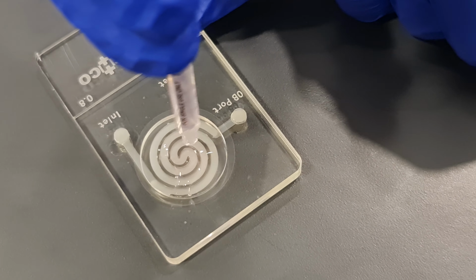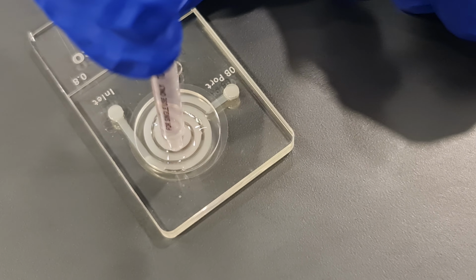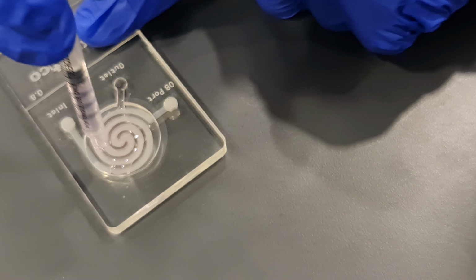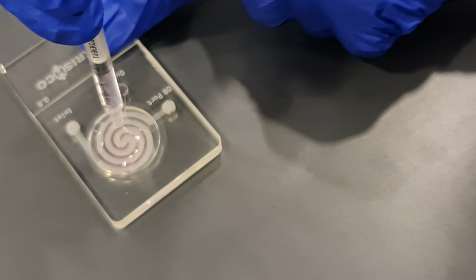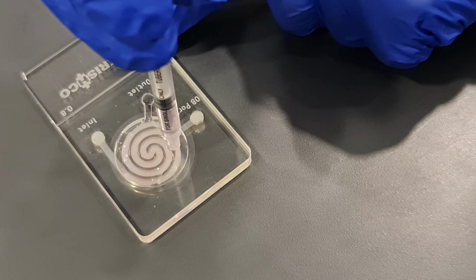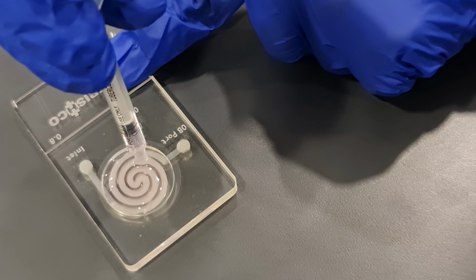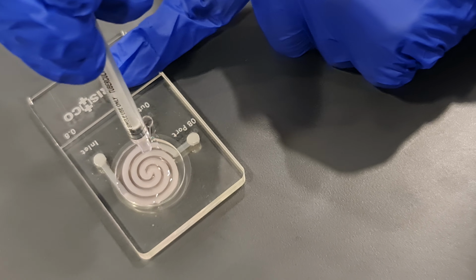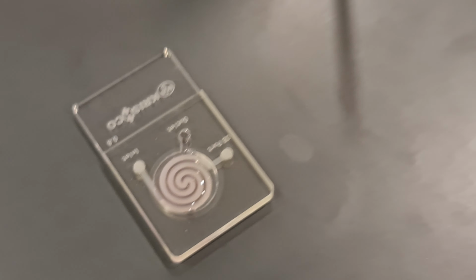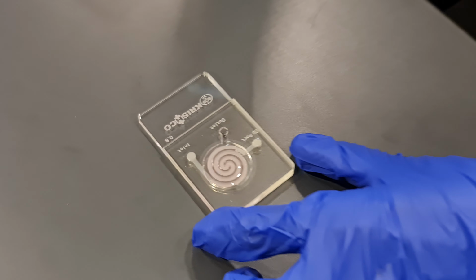And after we have done this, it will go inside a little plastic plate and then inside a humidified box incubator, which is non-carbon dioxide. So it is humidified and non-CO2, because the CO2 will denature the HEPES buffered media. So it has been done. I think it's all done properly. It's all okay.